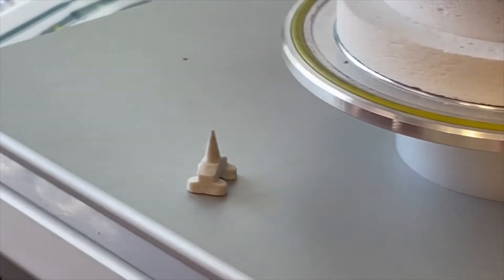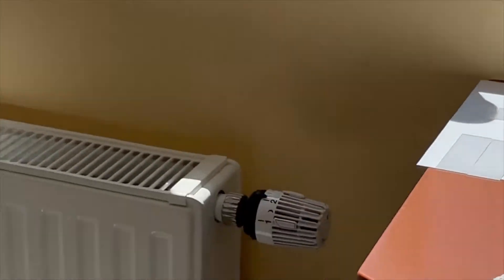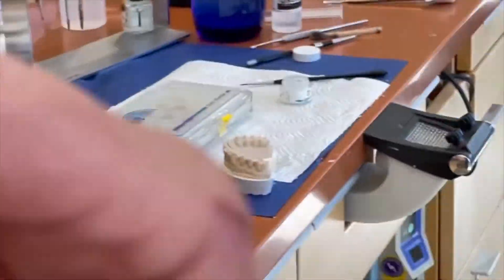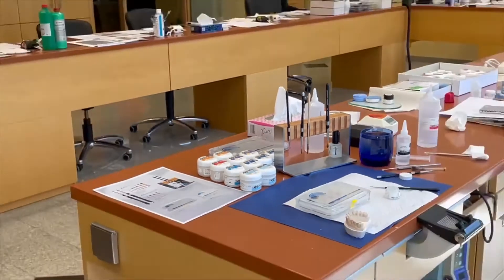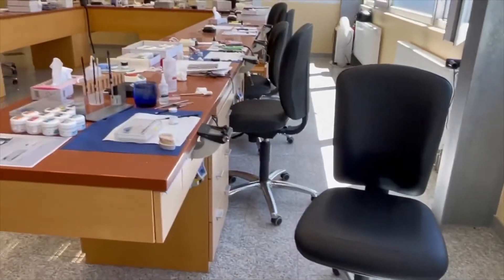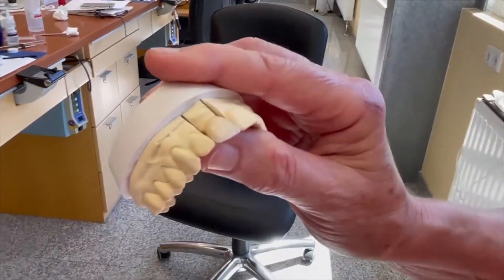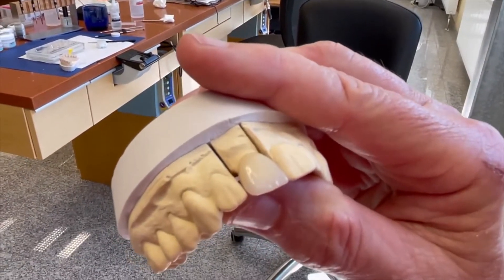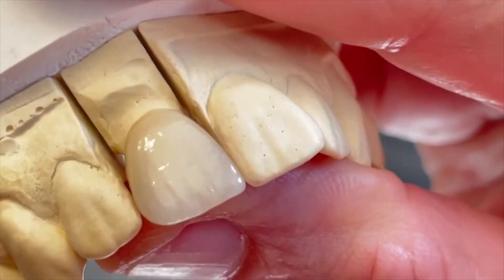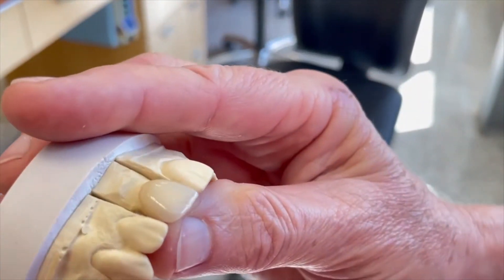Andrea shows the result. Just one second — you can see there was a small problem and we can help you with this small problem. First, a small view of the crown: very, very good, very natural. It is a great crown.